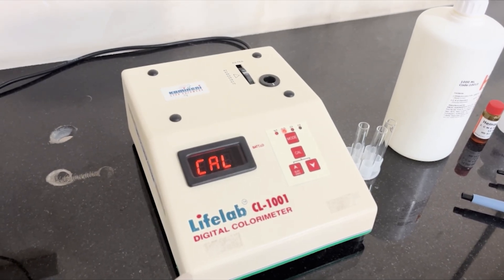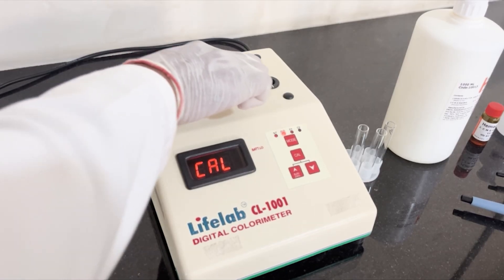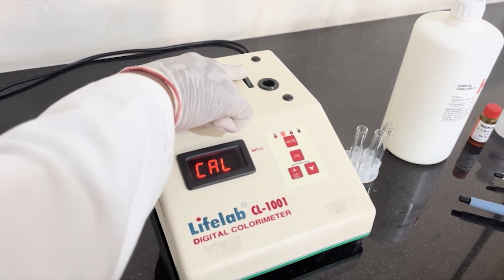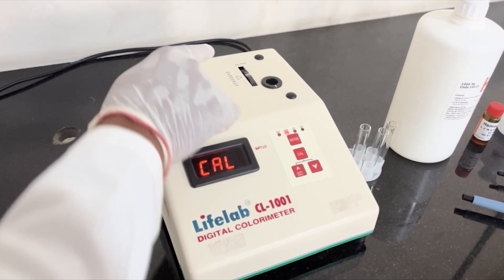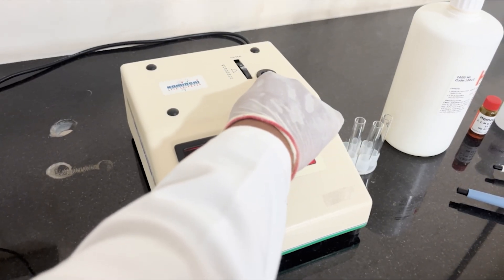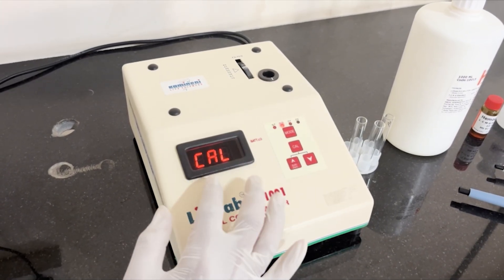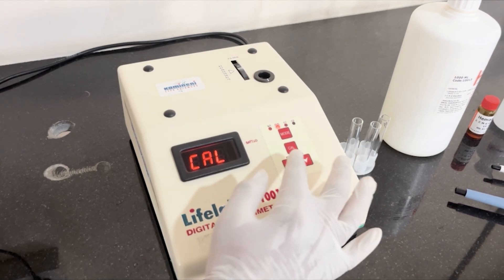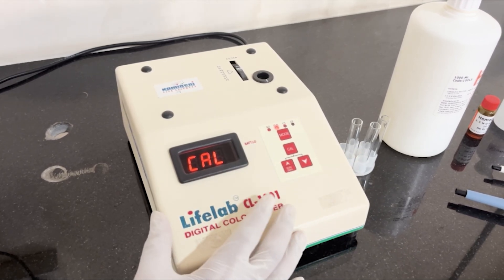It has filters — it consists of eight narrow filters and a cuvette holder, a digital display, and four membrane switches to operate this instrument.